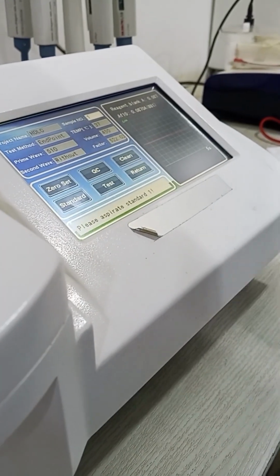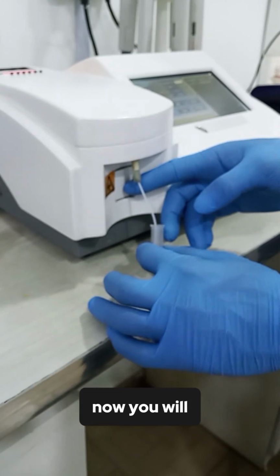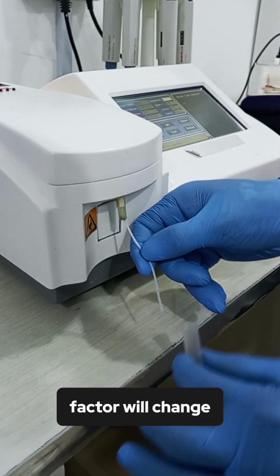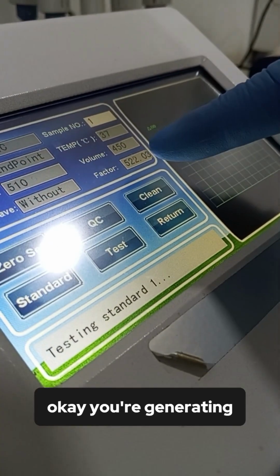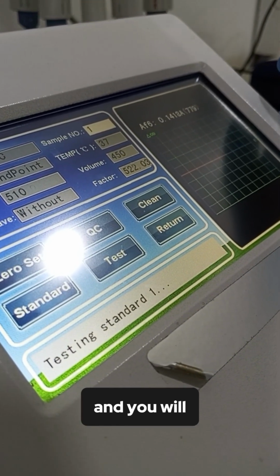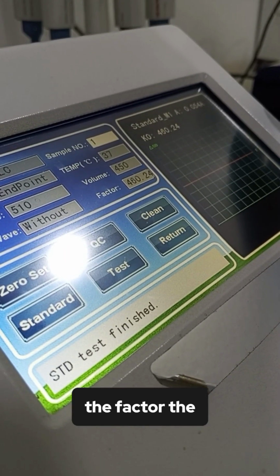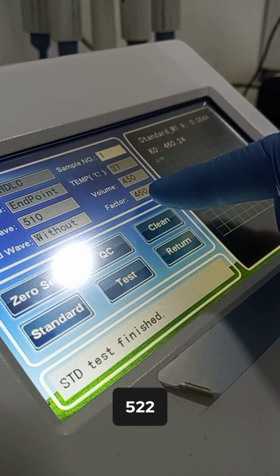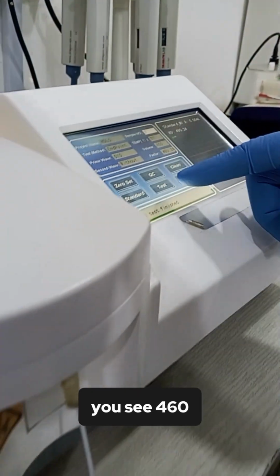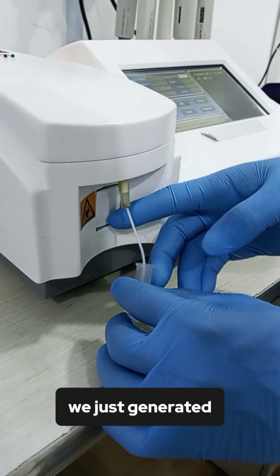You can see we are generating a new factor. Now you will discover that the value at that factor will change. Just watch closely and you will see that value there will automatically change. The previous factor was 522. Watch and you will see the new factor. You see 460. That is the new factor that we just generated.